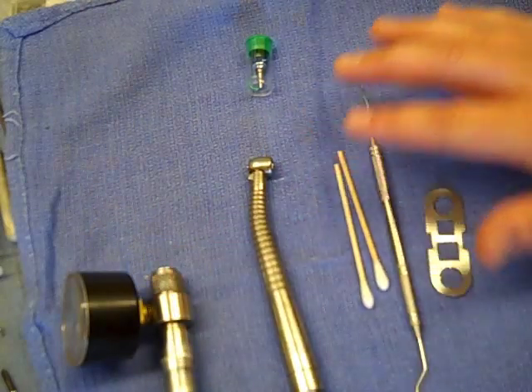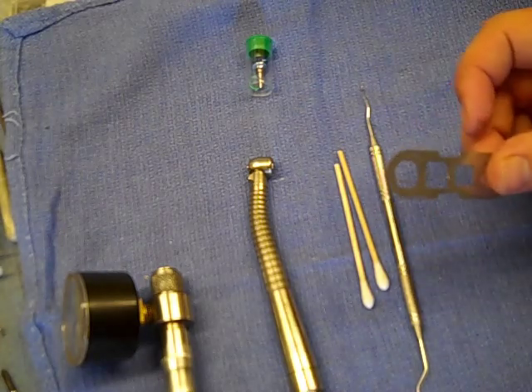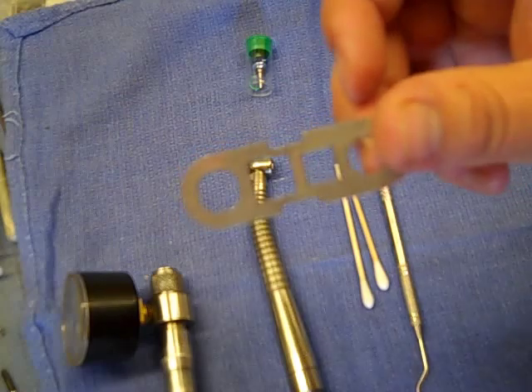This is what you'll need: a couple of cotton swabs, a dental explorer, and an end cap wrench. Ours might look a little different than what you have, but it'll have four prongs on it.